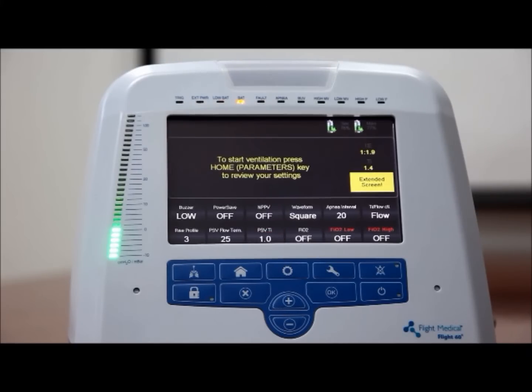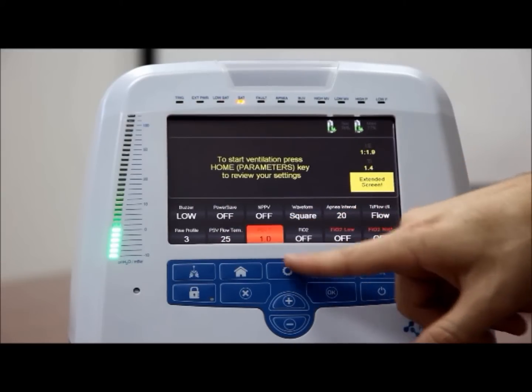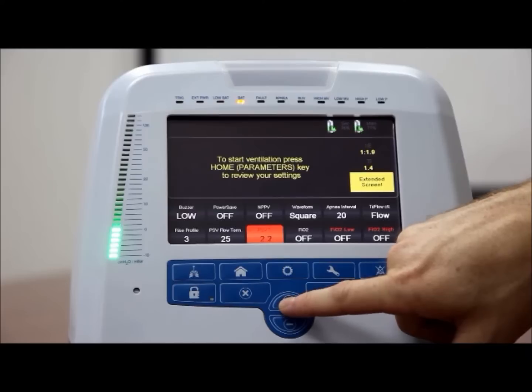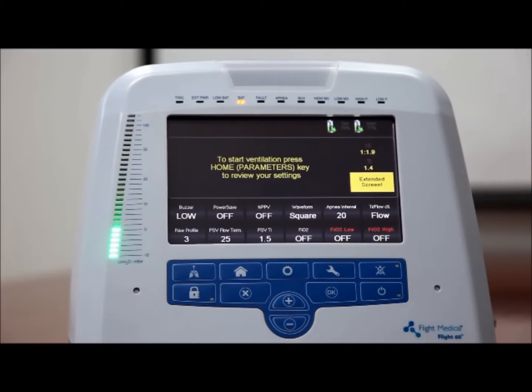However, it remains adjustable. To set the flow threshold, on the ventilator front panel, press the extended button. Tap the PSV-TI button. Press the plus and minus buttons to increase and decrease the PSV inspiratory time. It can be a value between 0.1 and 3 seconds.